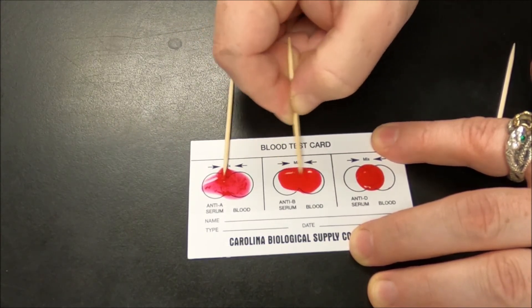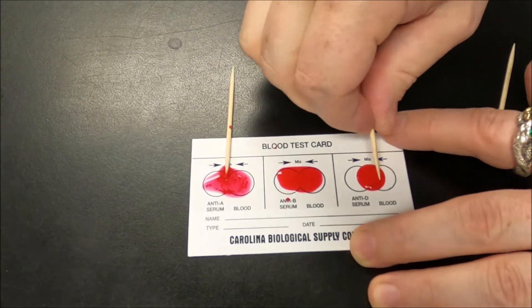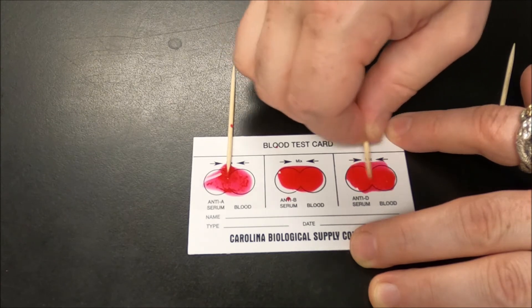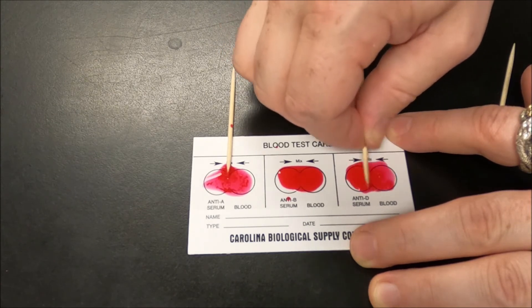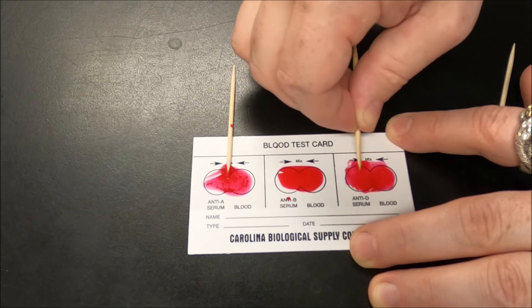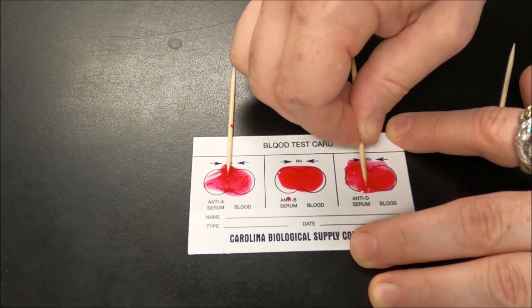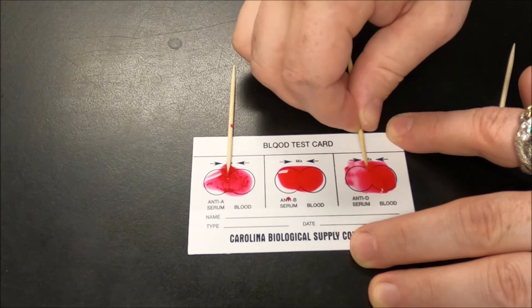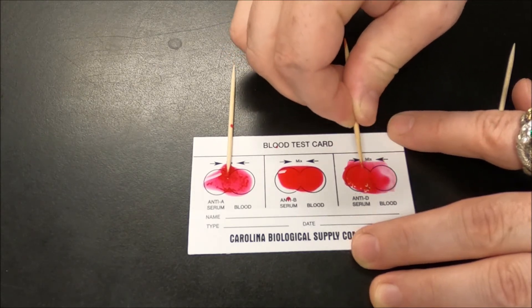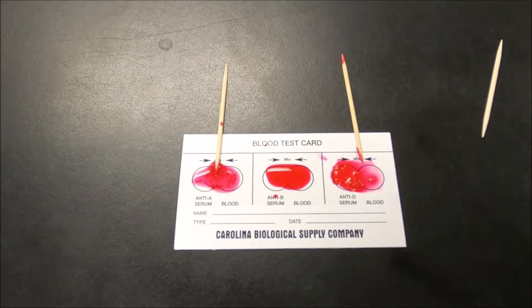Nothing's happening at all on the B side, so we'll go to rhesus factor. Oh boy, that's really going — that's going off big time! I hope you can see this — it is clumping up big time, big clumps. Look at that.